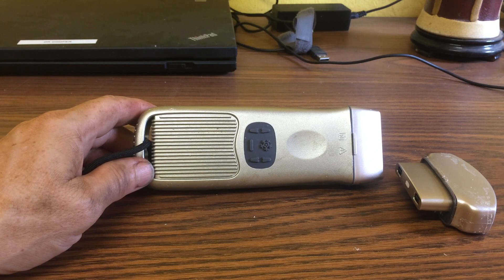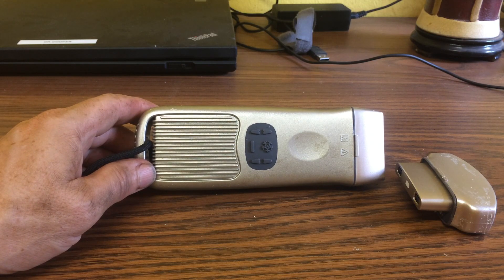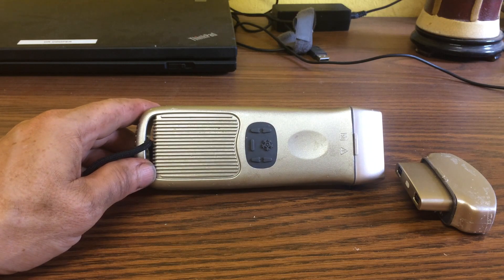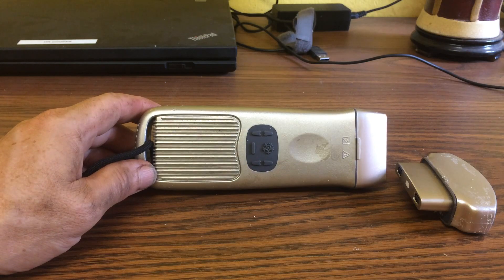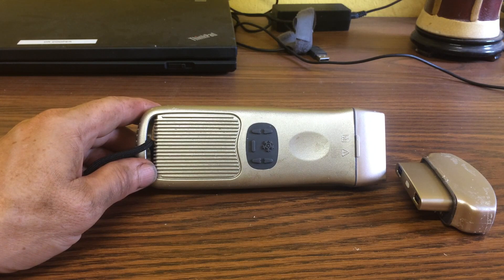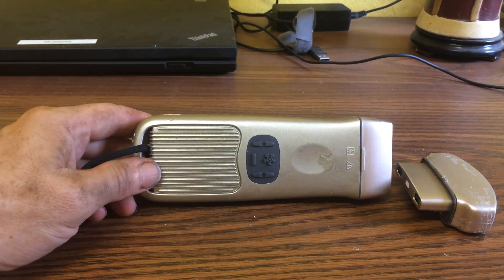The app is called W Hand Probe, which was kind of tricky to find. There is an Android version as well as iOS, and it also runs on Windows, but on Windows the interface is really glitchy and half the menus are in Chinese — I'd stick with Android or iOS. The app works okay but sometimes you have to shut it down and reopen it; it seems to have a few more bugs than the Sonostar app. But there are lots of options to optimize the image: you can change the frequency, add harmonics, adjust the grayscale and focus. There's also a list of preset settings listed as abdominal, gynae, OB, MSK, ortho, etc. It takes a little practice to optimize, but the image on this is much better than the Sonostar.